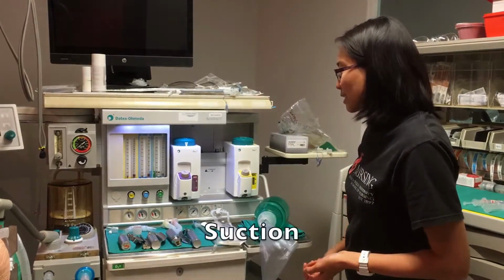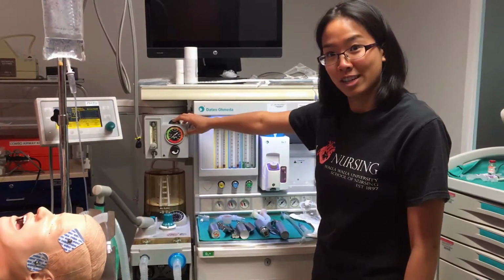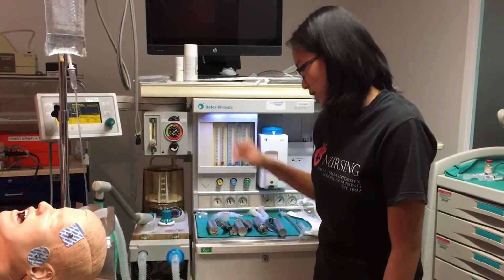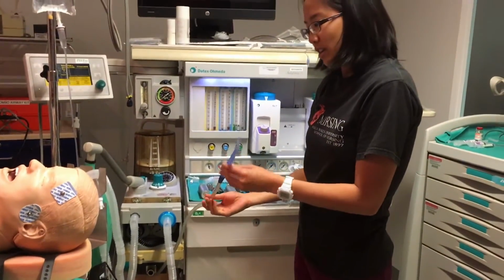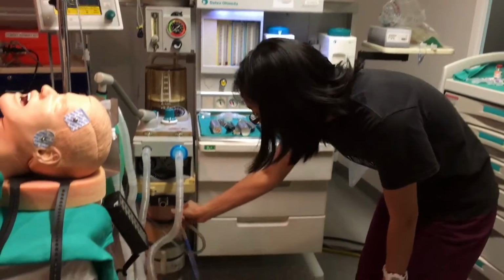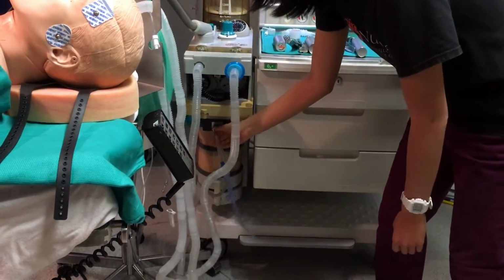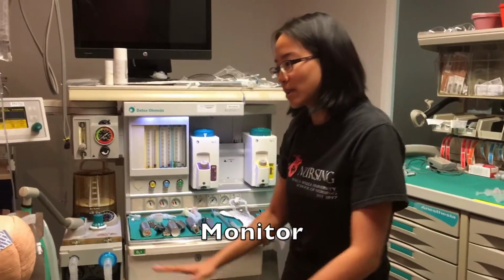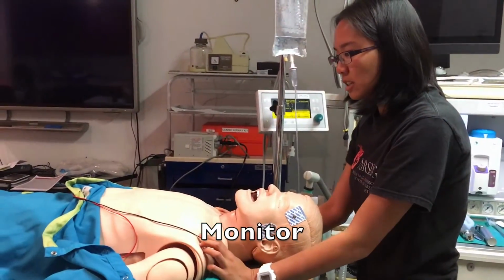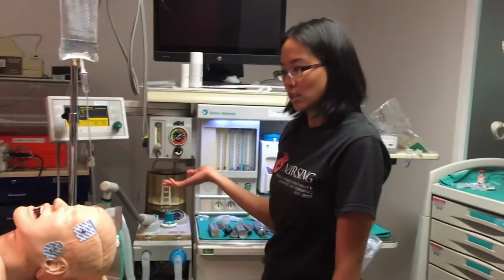S stands for suction. Always want to make sure that's on. No suction, no induction is a rhyme that one of the teachers said. We have a suction tube in here. Usually you just kink it and put it in a spot. Always know where your suction is. That's really important for the preparation in the room. Next, M is monitors. You want to make sure EKG leads are present, blood pressure cuff, SpO2, etc.